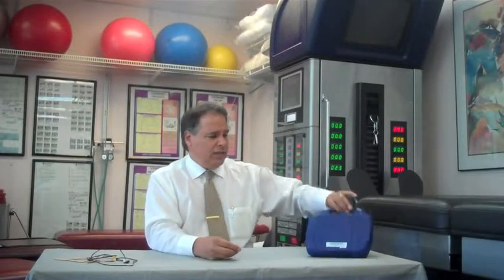Today we're going to talk about a 5-mode TENS unit for the Intensity 5000. This is a hybrid unit and it comes with everything that you need to get started.